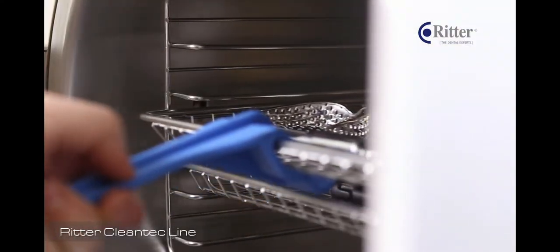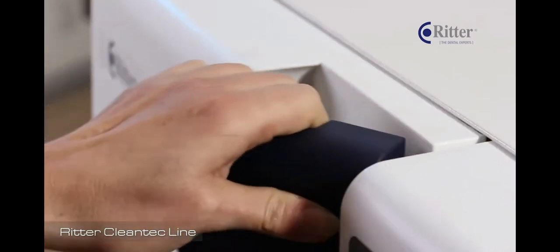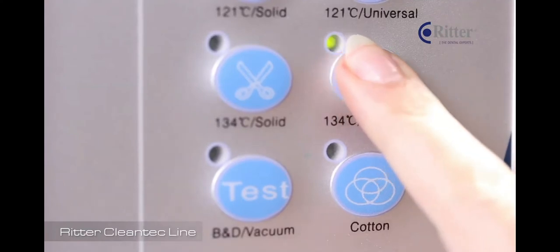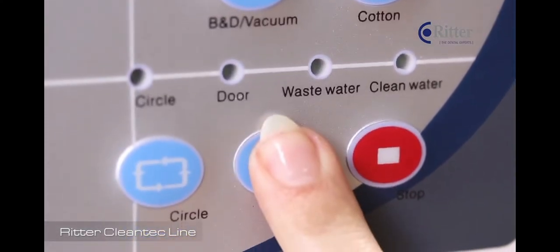The autoclaves sterilize solid and hollow instruments, wrapped or even porous loads. On the integrated microcomputer you can choose from many different sterilization programs. Complex technology but simple handling.